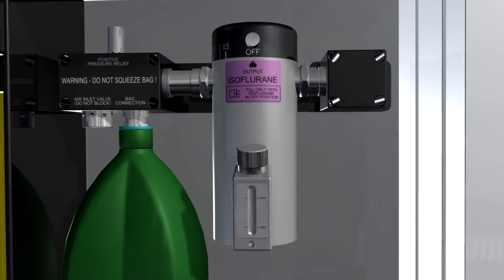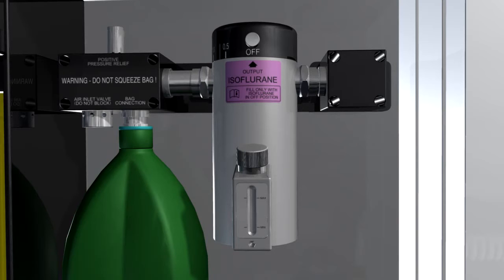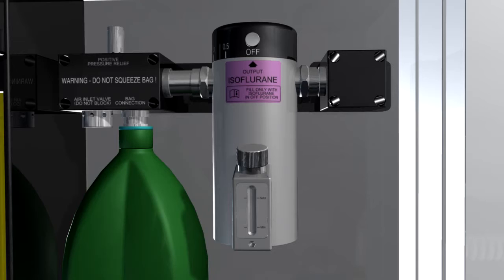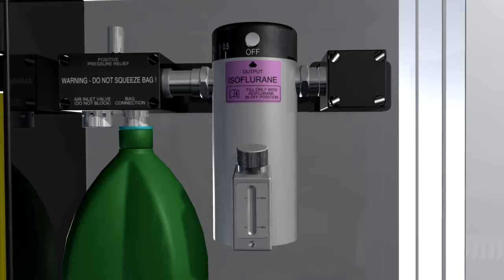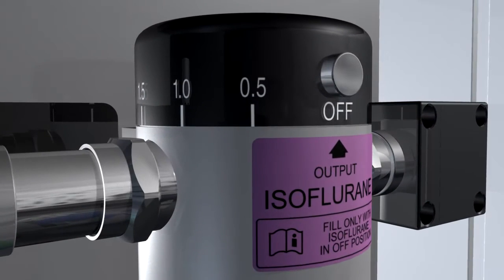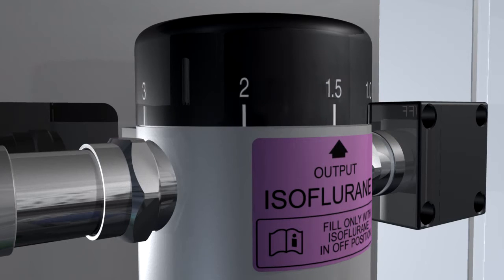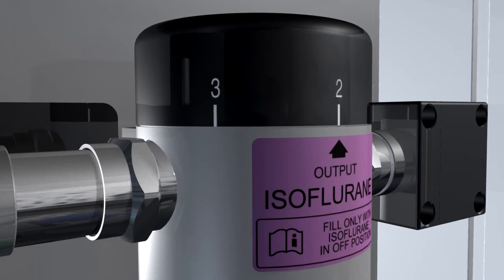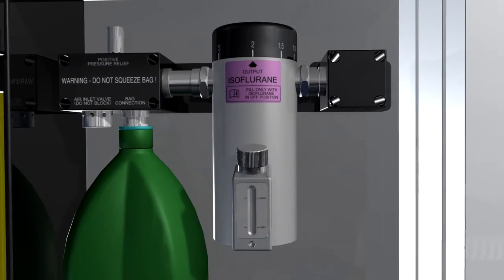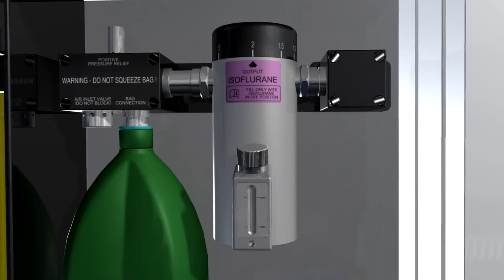The low resistance draw-over vaporizer adds volatile agent to the carrier gas passing through it. Volatile agent is added by using the selector wheel to achieve the desired percentage. We now have anesthetic gas comprising oxygen, volatile agent, and a variable amount of room air.